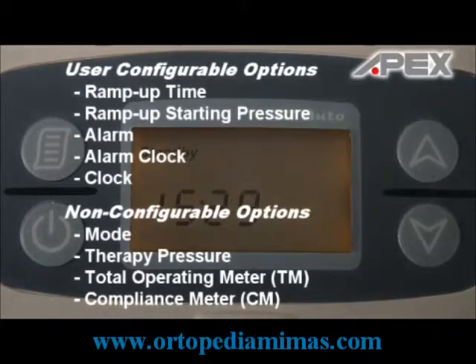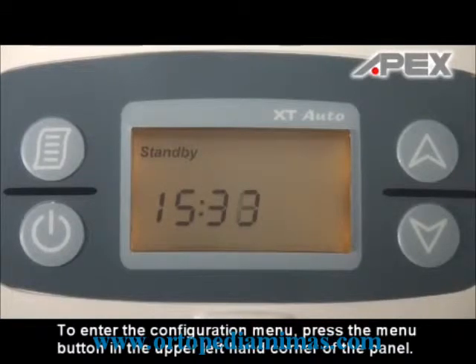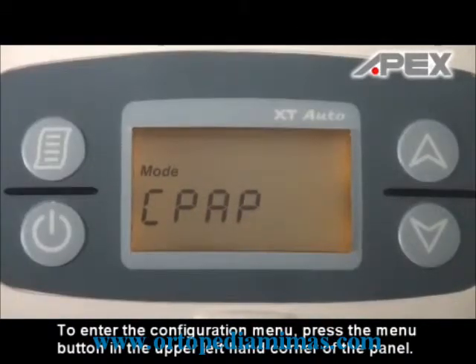There are 5 options that you can configure on the XT Auto in Cpap mode. They are ramp up time, ramp up starting pressure, alarm, alarm clock, and clock. There are 4 other options that are not configurable and are left to the caregiver to configure. They are mode, therapy pressure, TM or total operating meter, and CM compliance meter. If you want to configure options on the XT Auto, the device must be in standby mode. To enter the configuration menu, press the menu button in the upper left-hand corner of the panel.